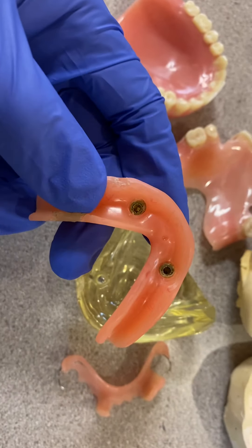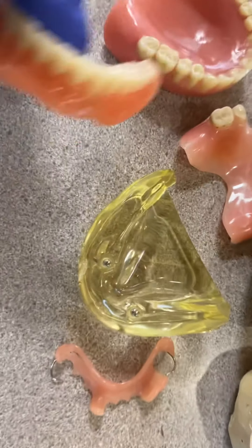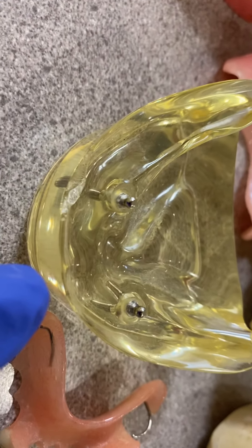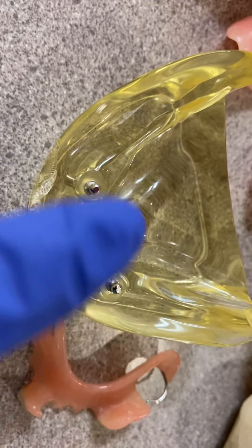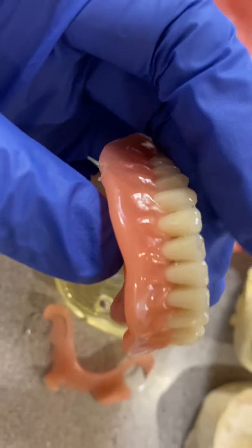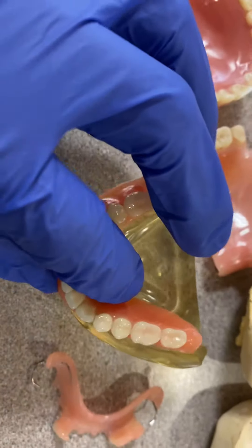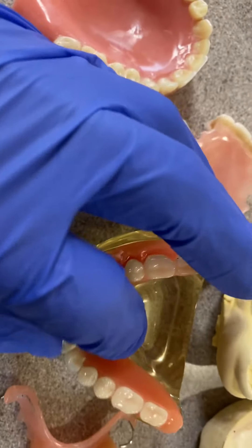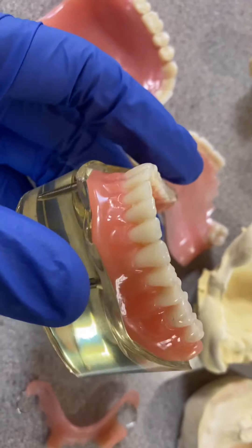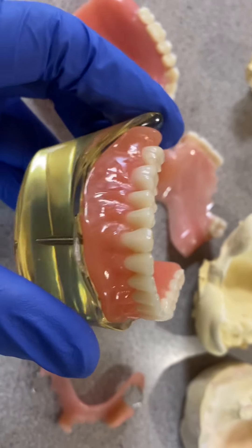This is the attachment underneath. You can see there are many ways of doing implant over denture. This is one way — called a one-unit implant, all together in one unit. These are called locator attachments, and basically it snaps onto the implant and is really secure.